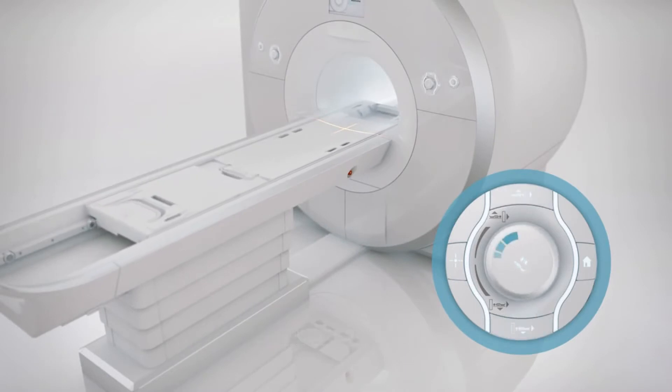Fine tuning and adjustments are possible with the sensitive turning wheel. Pressing the turning wheel will bring the patient table to the isocenter position, and pressing the home button brings the patient back out again.